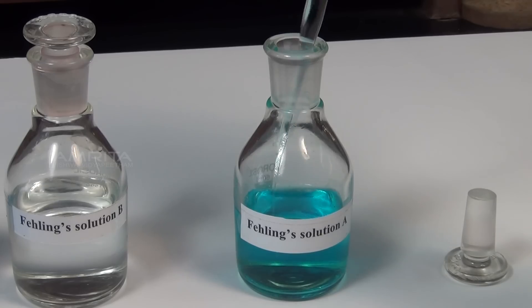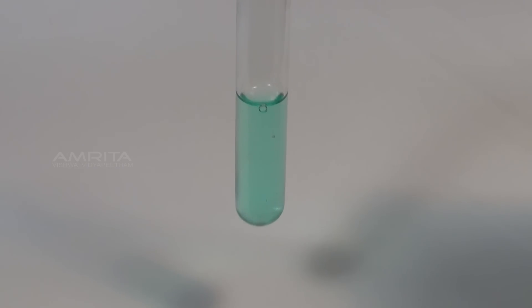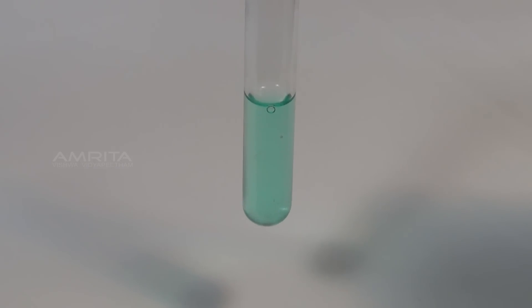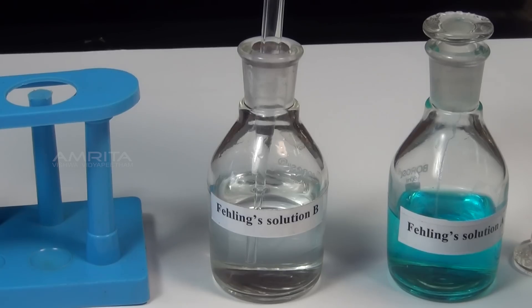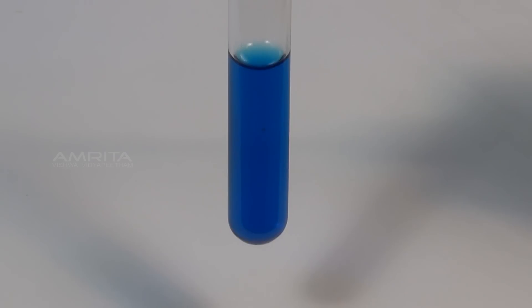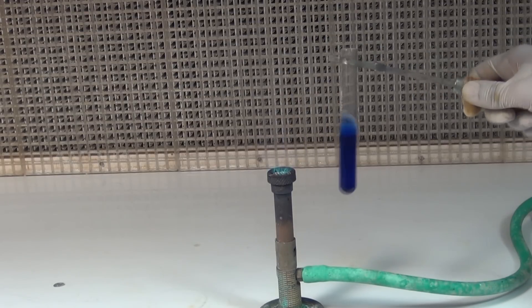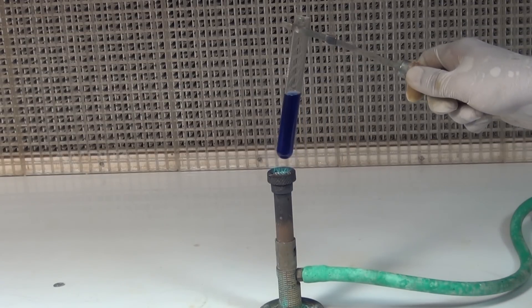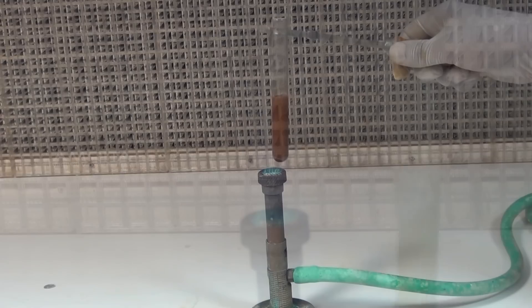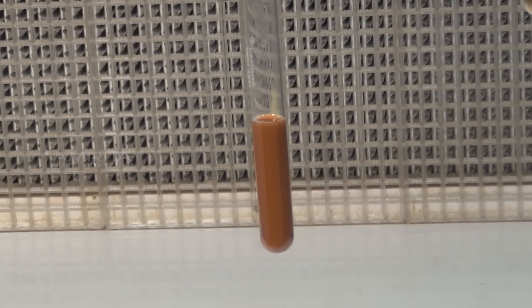Procedure: Using a dropper, take a small quantity of Fehling's solution A. Now add Fehling's solution A to the test tube containing the urine sample. Using a dropper, take a small quantity of Fehling's solution B and add it to the test tube containing the urine sample. Boil the sample over a burner for 2 minutes, holding the test tube firmly with the test tube holder. Keep shaking the test tube while heating. A brick red precipitate appears, indicating the presence of sugar in the urine.